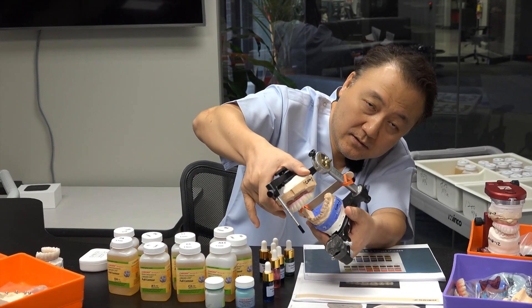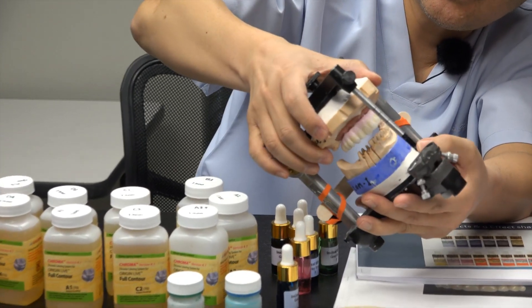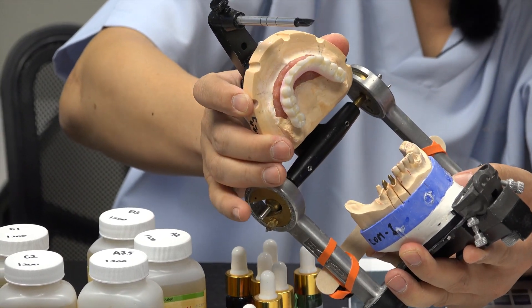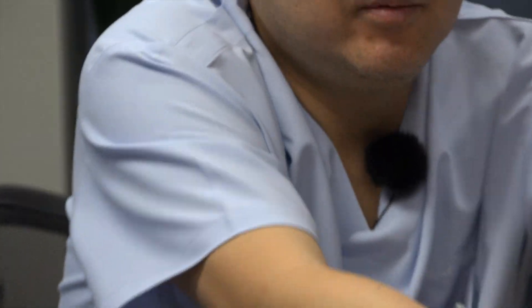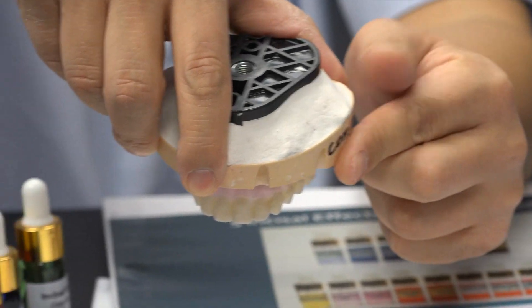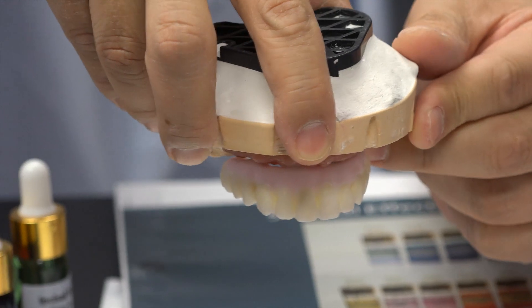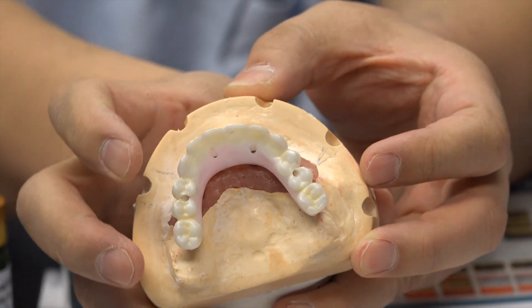Here's the coloring detail — incisor translucency, everything — and the embrasure area has the coloring. That's great, nice. So we can do layer by layer. You want to see it a little bit better, so I open it like this. That's what I'm looking for. Then I can easily save a lot of time to create the final prosthetic as much as possible.